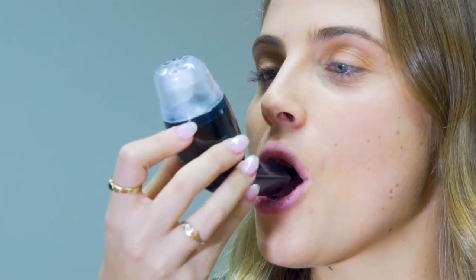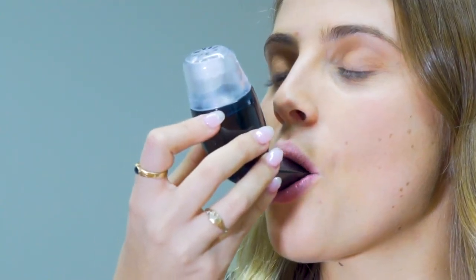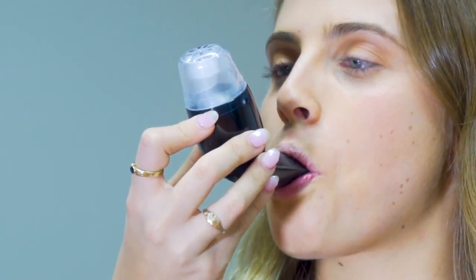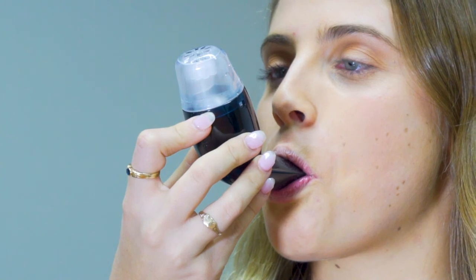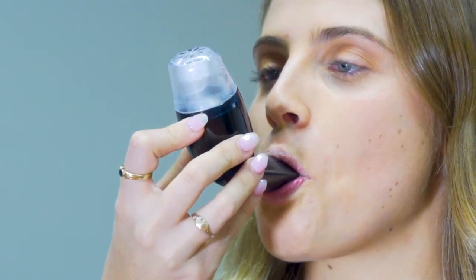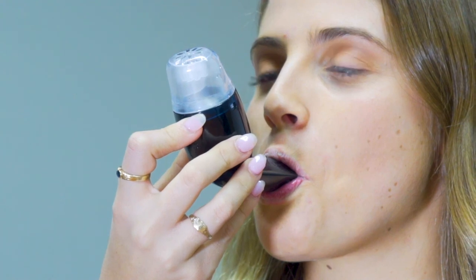This process also helps to make a more efficient cough and allows you to remove foreign particles and excess mucus from the lungs whilst also helping to expand your lungs and helping the mucocilia escalator to function more efficiently for removal of mucus from the lungs.